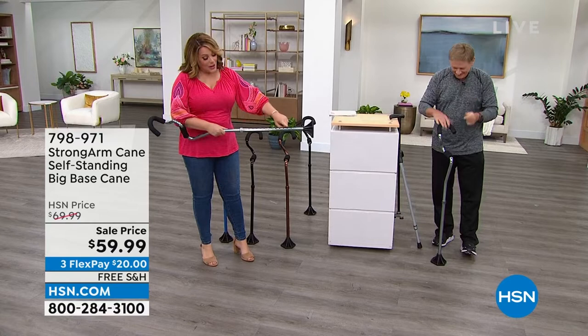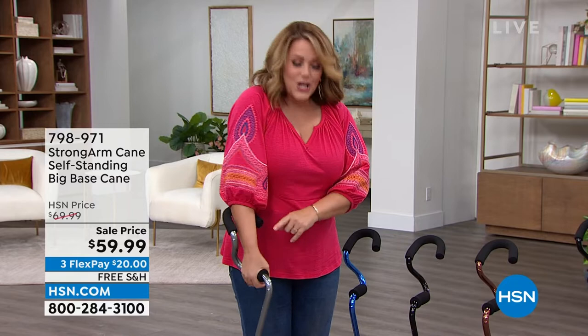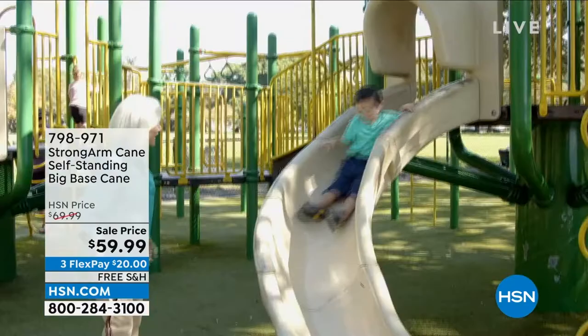12 different adjustments — I just adjusted mine, world of difference. I felt it the minute I adjusted it: the weight went right from my wrist to the forearm. So now it's like you're leaning on it — it takes the pressure off your wrist completely. 500-pound capacity, really beautifully made. Everywhere your hand goes, the cradle where your forearm goes is nice and cushiony.